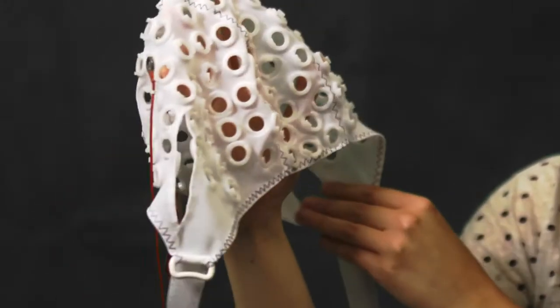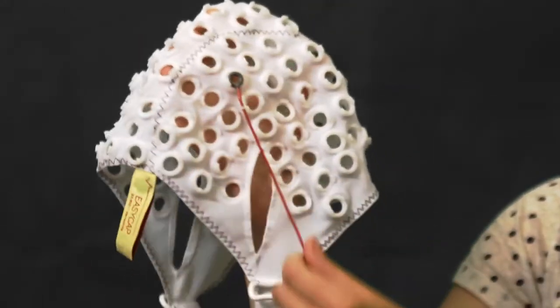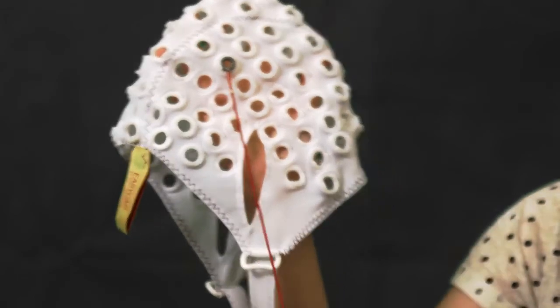It means it's a lot simpler. All you have to do is connect the individual electrodes and then plug them into your amplifier, and you're ready to go. It saves a lot of time. So that's how commercial systems use it. Thanks very much.